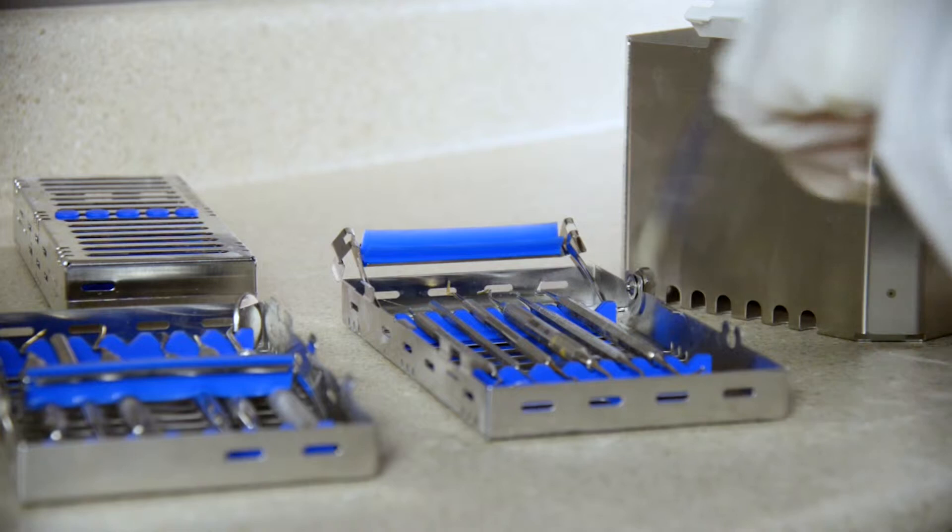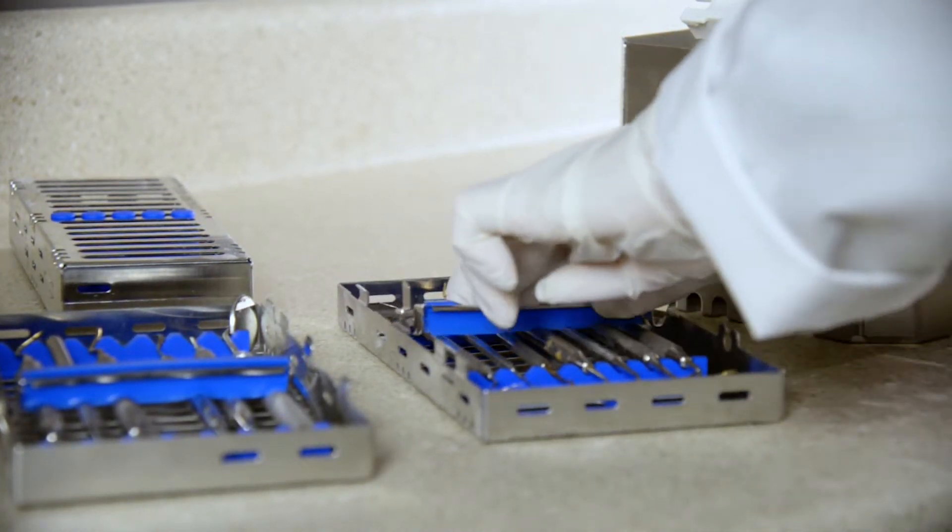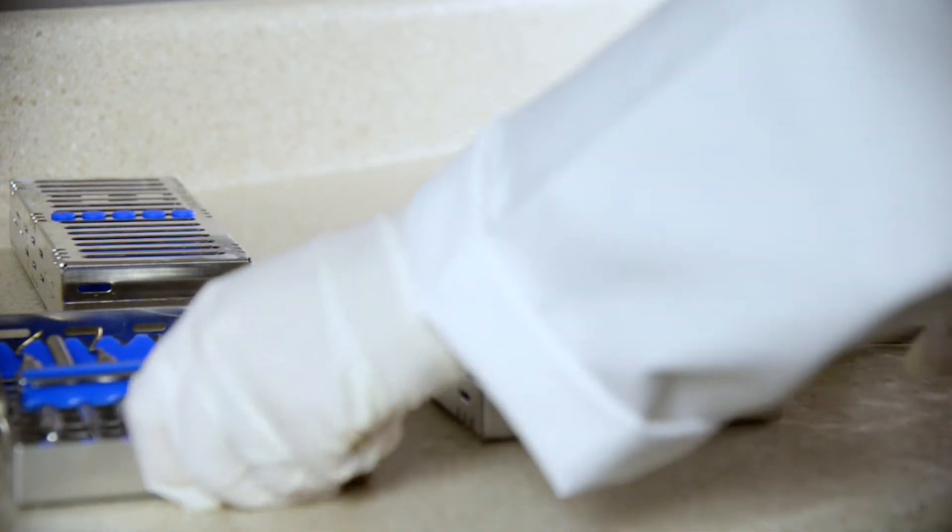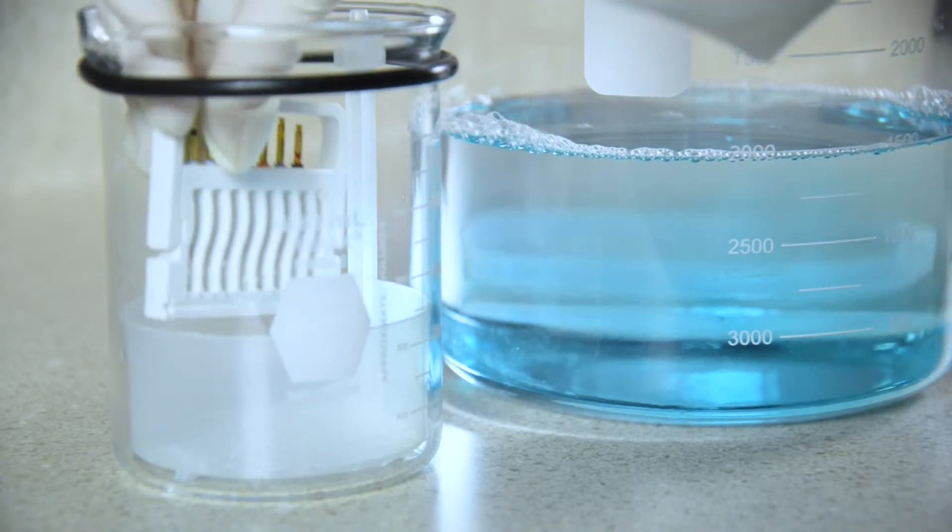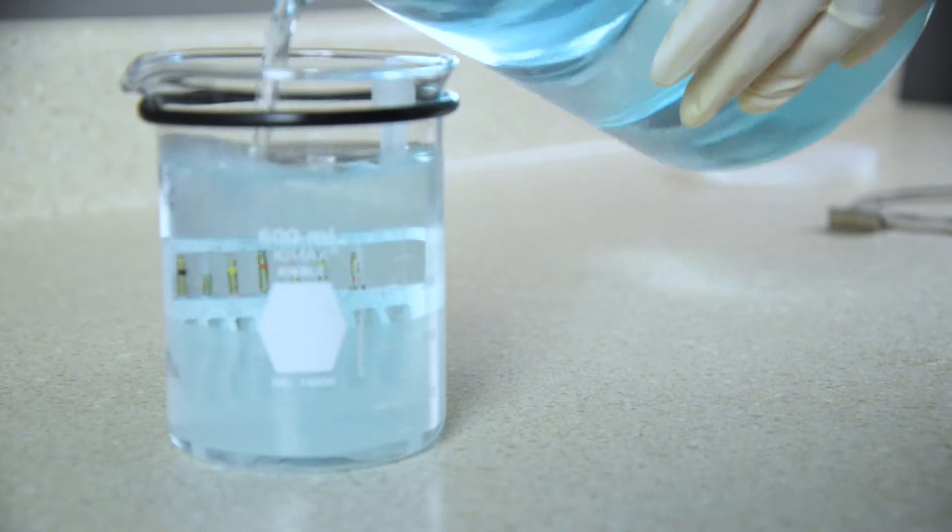How long instruments have been soiled prior to cleaning: soil should not be allowed to dry on instruments prior to cleaning. It should be processed immediately following a procedure. If instruments cannot be cleaned immediately following a procedure, it's recommended that they be placed in a soaking solution so the soil does not harden on the instruments.